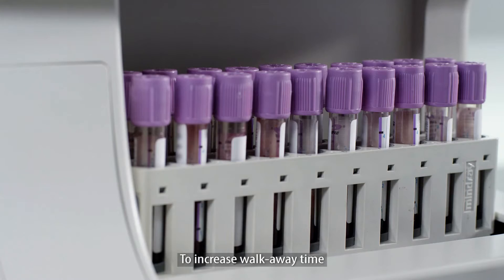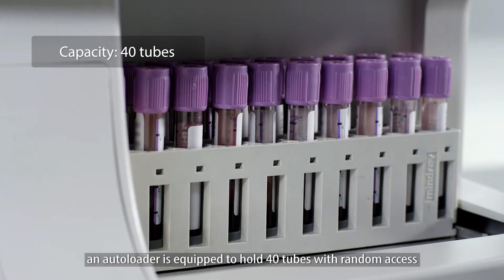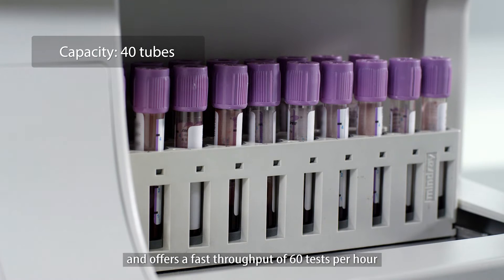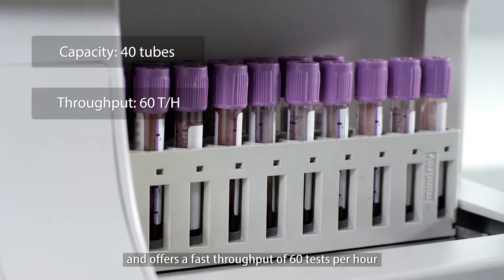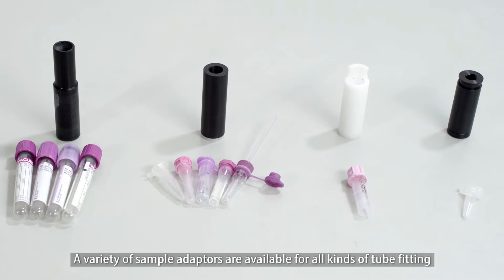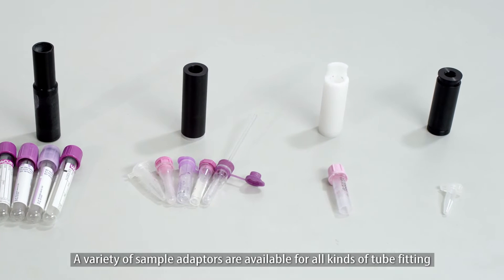To increase walk-away time, an autoloader is equipped to hold 40 tubes with random access and offers a fast throughput of 60 tests per hour. A variety of sample adapters are available for all kinds of tube fitting.